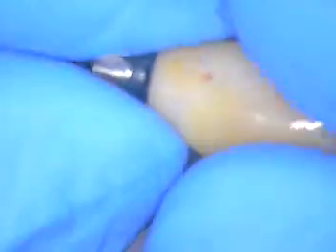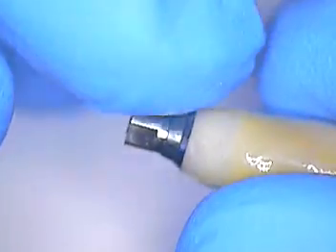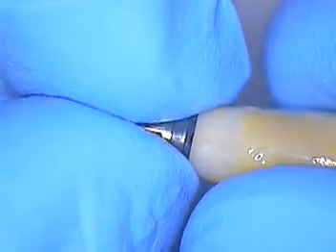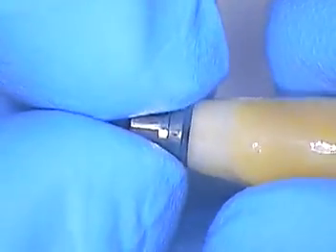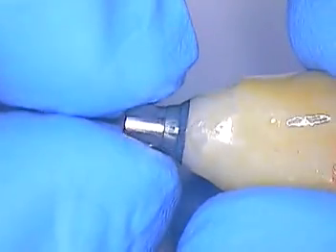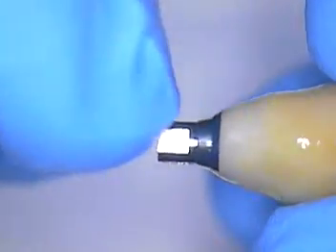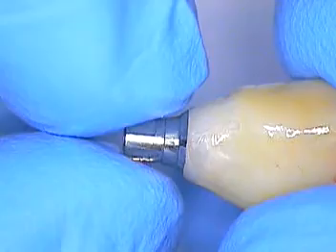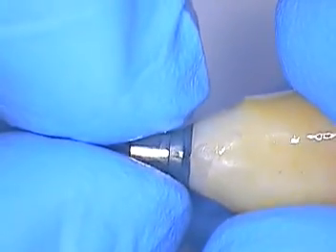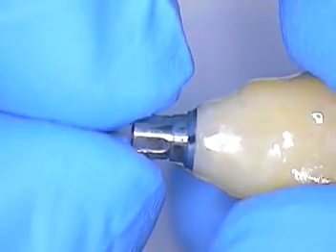What we did improve upon, from the last time we spoke, is that there was a butt joint where the metal met the seating of the zirconia pattern itself. That was polished and contoured, so now that matches. The platform of this metal also matches that of the Straumann temporary abutment, which is configured in the same way.